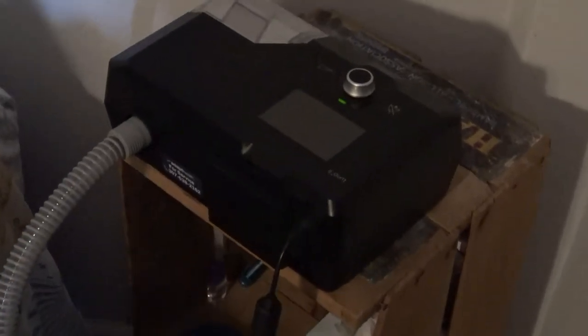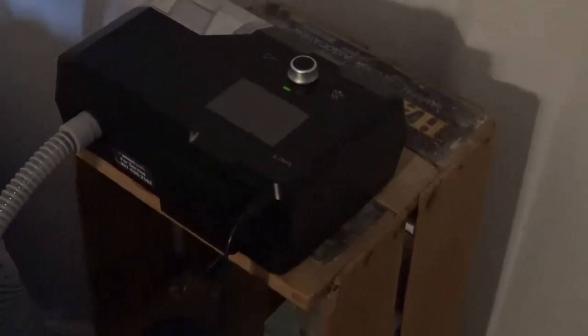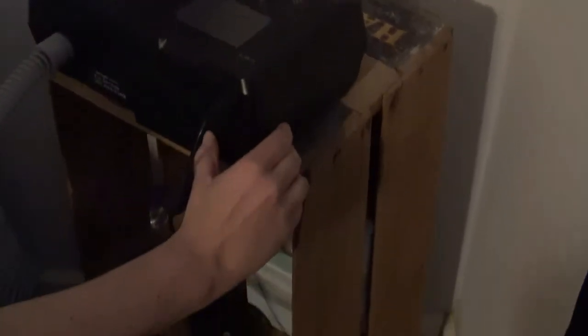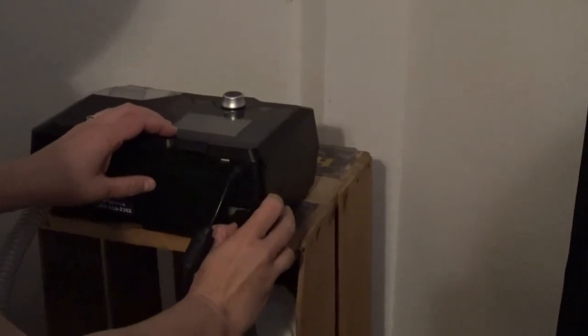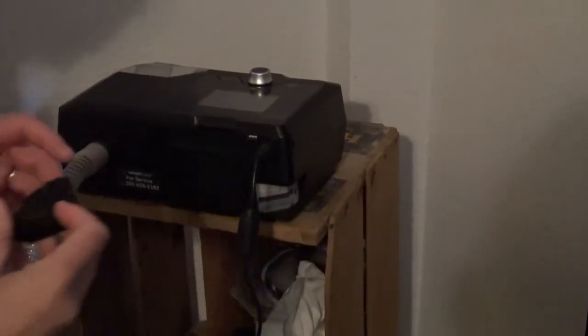As with most CPAP machines, I know with the Philips Respironics DreamStation it was a pretty easy setup as far as cleaning goes. It does say to replace the air filter every two weeks. There is a little black piece of foam right here, and this is going to be your little filter. According to the user manual, it does say to replace this every two weeks or as often as needed based on sanitary conditions.